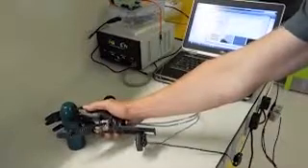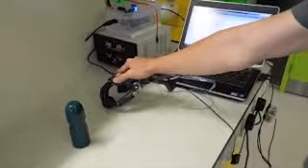A camera is used to estimate the size of the object, select the grasp pattern and switch if necessary. It can be seen that as the hand moves from its starting position towards the object, the decision is made and the grasp is switched.